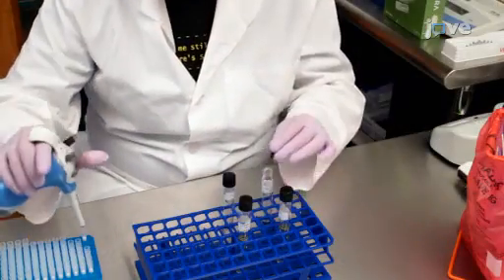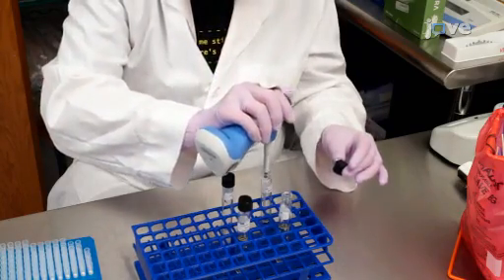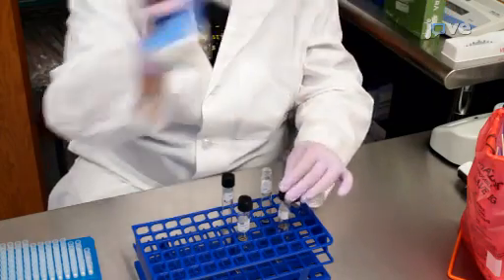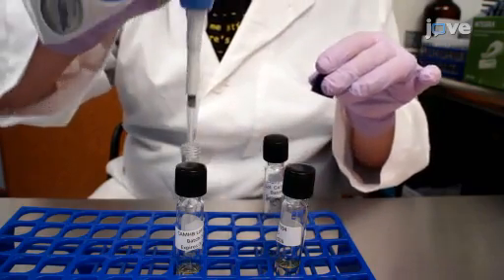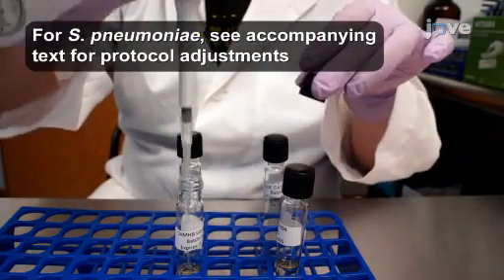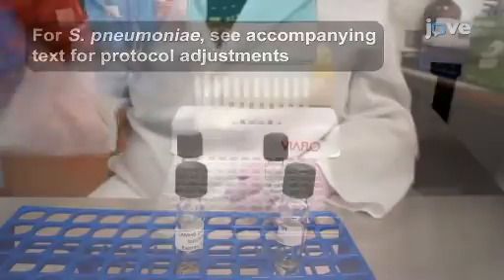Within 15 to 30 minutes of preparation, dilute the inoculum 1 to 100 in CAM-HB to arrive at a final concentration of 5 × 10⁵ CFU per milliliter. The acceptable range is 2 to 8 × 10⁵ CFU per milliliter.